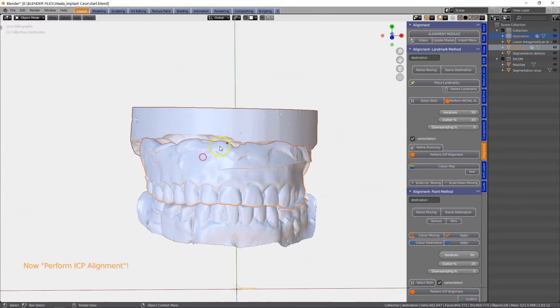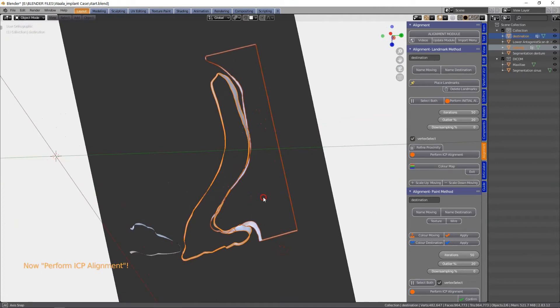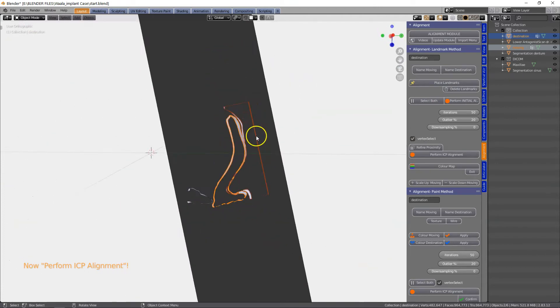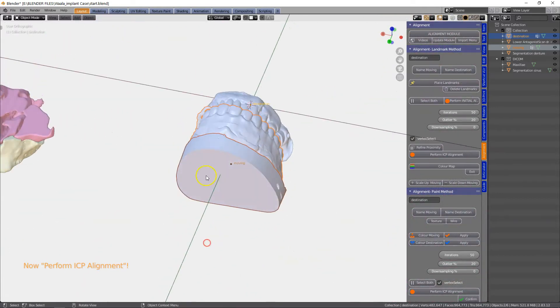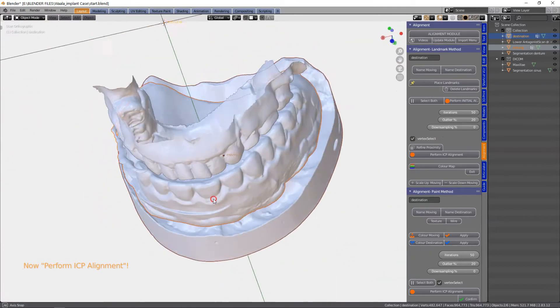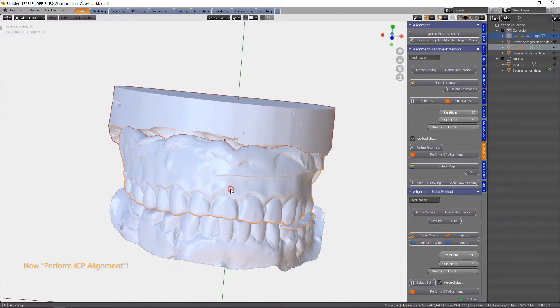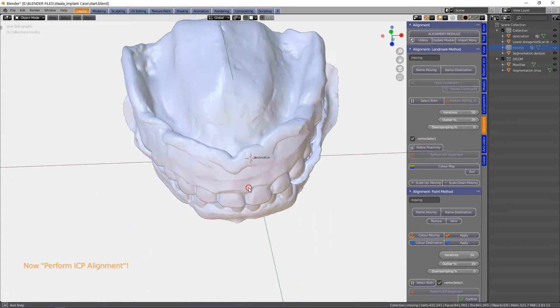Perform initial alignment — that looks okay. And then we're going to perform ICP. And that's good. I'm going to refine this ICP a little bit. Perform ICP. Perfect — couldn't be any better. Let us view this in cross section just to make sure. It's looking quite good — the denture is there. It's lifting a little bit at the back, and this is really relatively important because this becomes my fitting surface. We can fine tune that a bit later, but I think it should be okay.